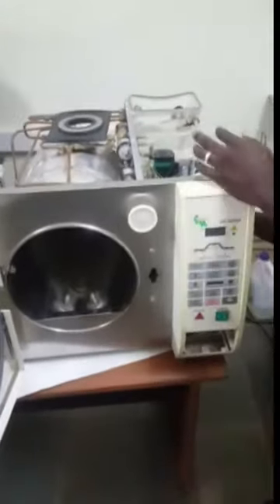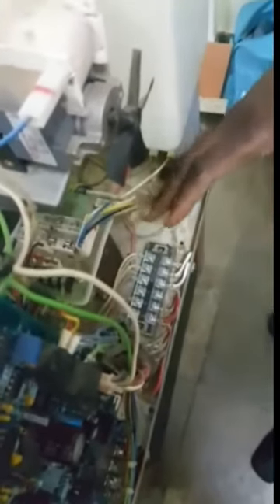After that, we check our fuses to see whether they are sitting well in their sockets properly, and that all the cables are properly seated. Because if the cables here are not properly seated and the connectors are not good, you are likely not to have the device powering. We also check this cable going to the door panel to ensure it is properly in place.